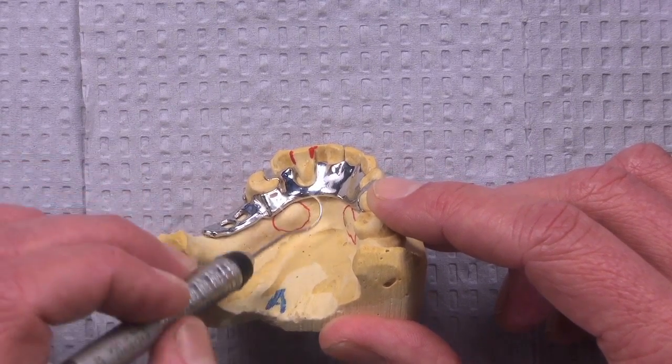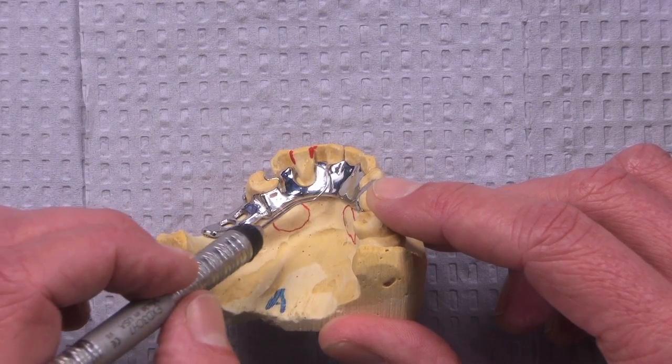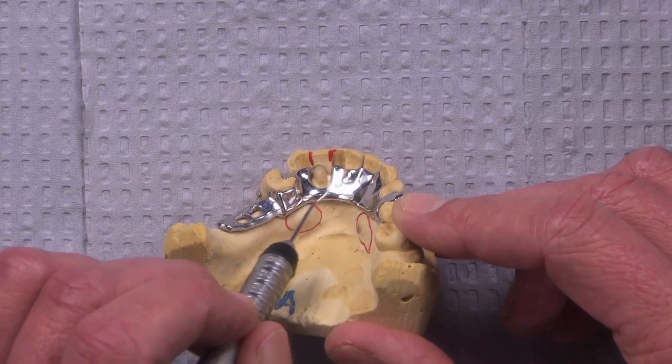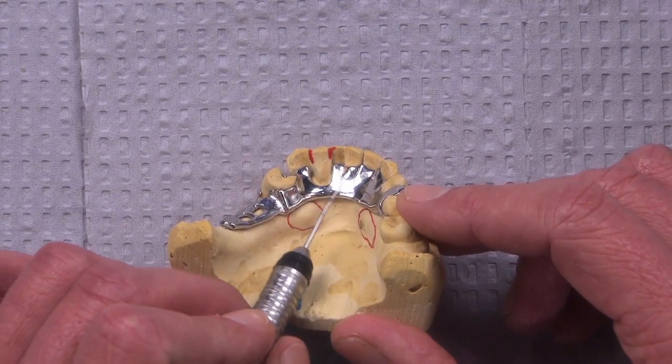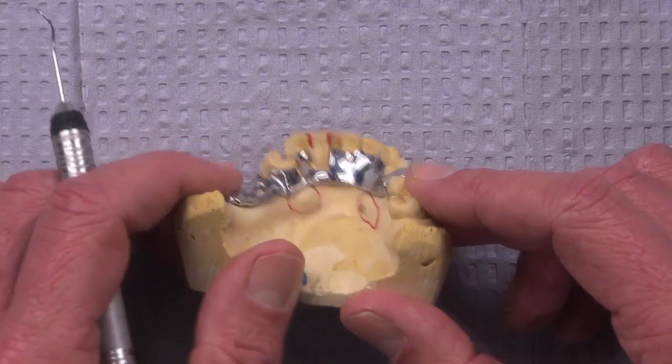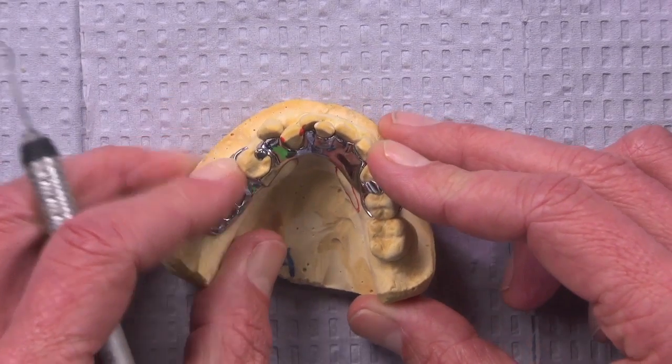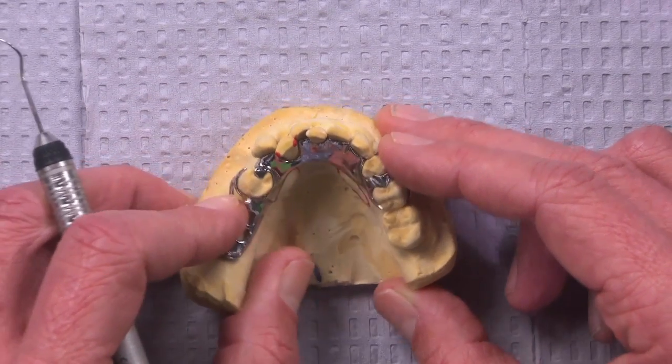And had those been reduced a little bit, and the mesiodistal thickness of that tooth been reduced, we would have been able to take this major connector and wrap it along the back here, because it does provide good support for those lower anterior teeth having it there in the back. But we did have to have the cutout there to allow the path of insertion for the frame to go into place with that tooth positioned where it is lingually and being as wide as it is.